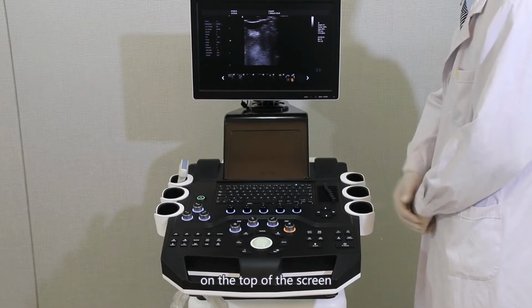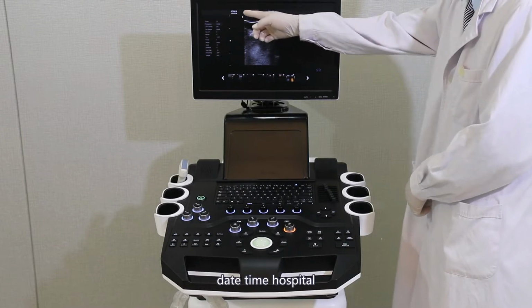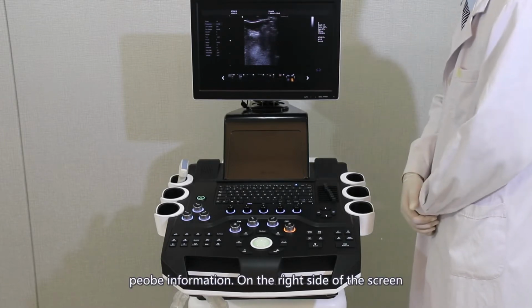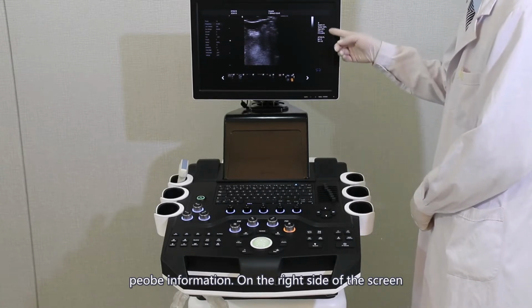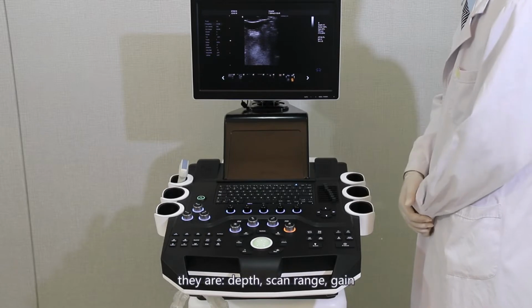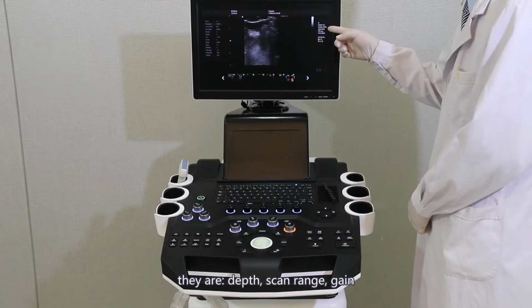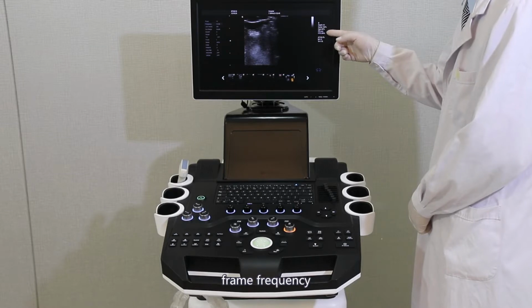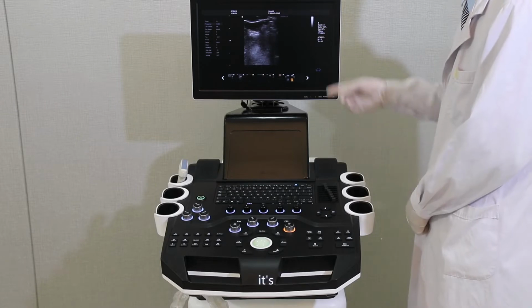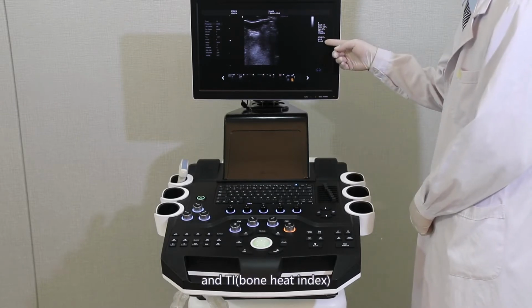On the top of the screen are the date, time, hospital, and probe information. On the right side of the screen is the status of current parameters. They are depth, scan range, gain, frame frequency, and below are the biological effect indexes, MI and TI.